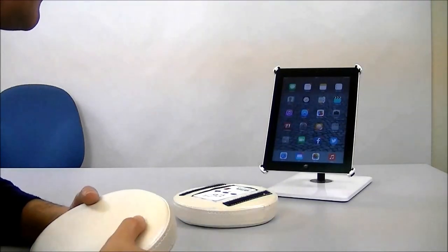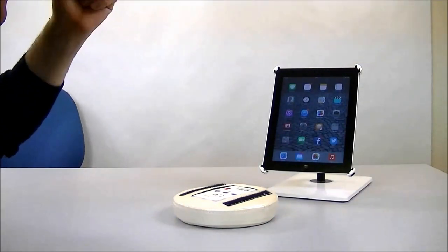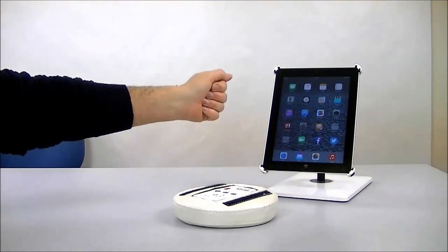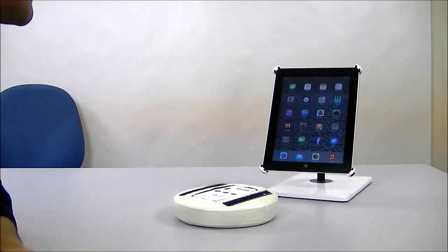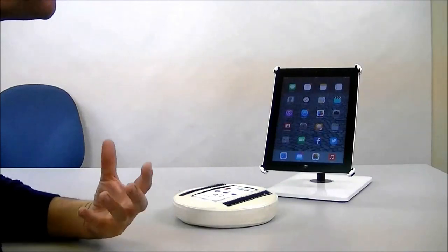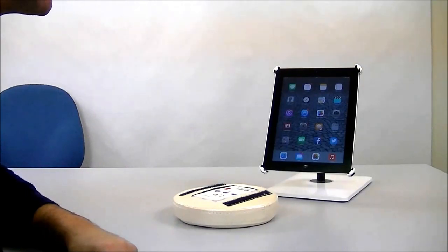You can certainly make your own arrangement for this. I've got it paired with the iPad already and the iPad is set to iOS switch control so I can demonstrate some real functionality. You can use this soft switch to select items on the screen.